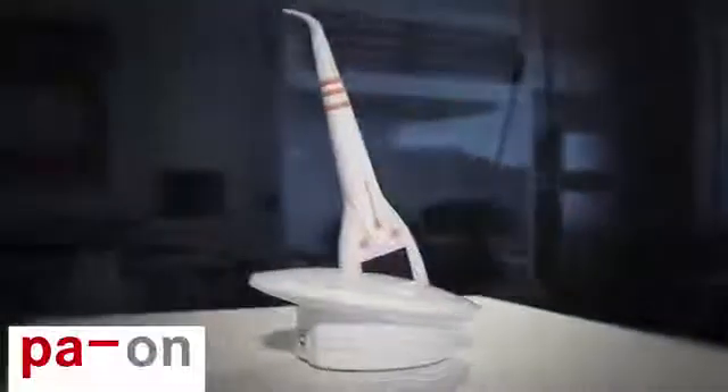So, what are you waiting for? Periodontal status made easy — a solution by Orange Dental. Simply Periodtastic. Thank you.